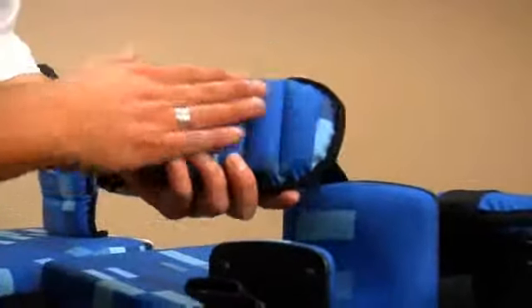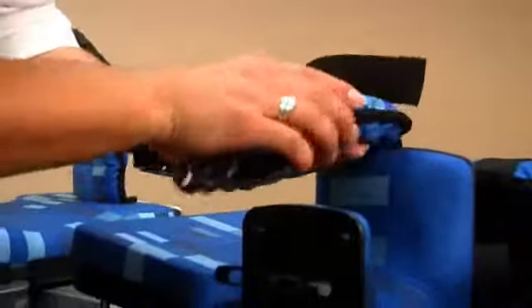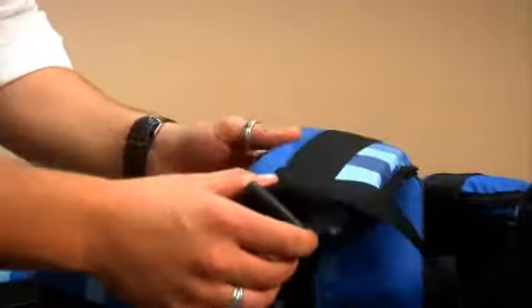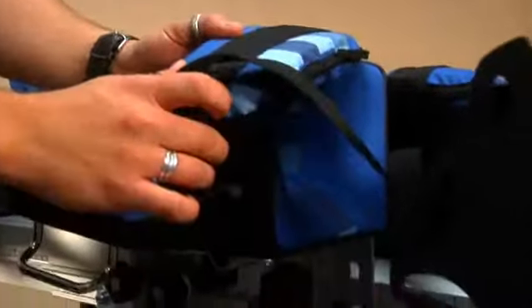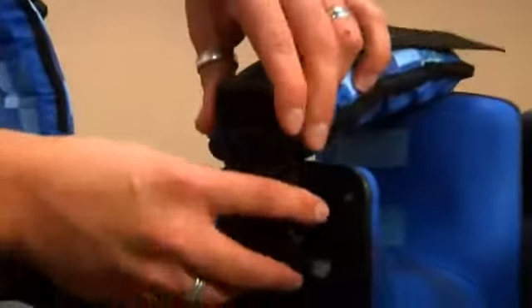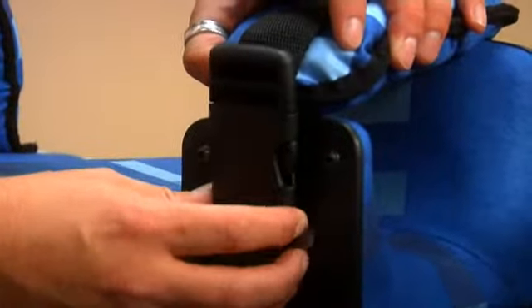The knee cup is really easy adjusted. You have this nice, soft, padded, durable support that can be positioned either above, on, or below the patella. Once you get that in the right position, then you can lock this off with this really durable buckle.